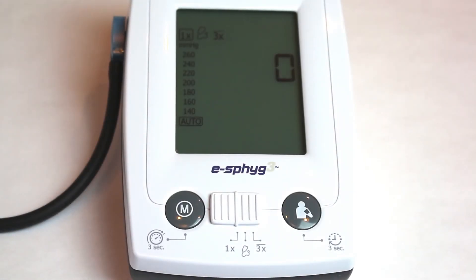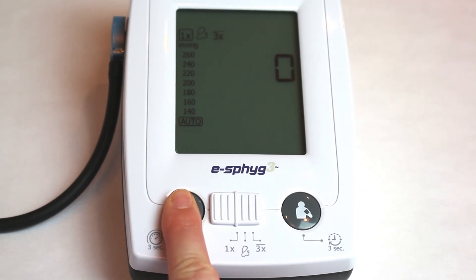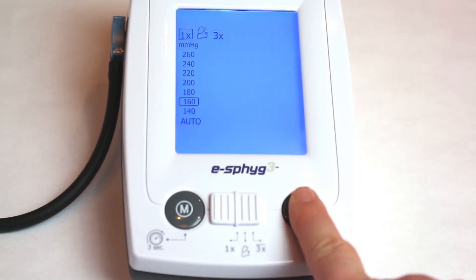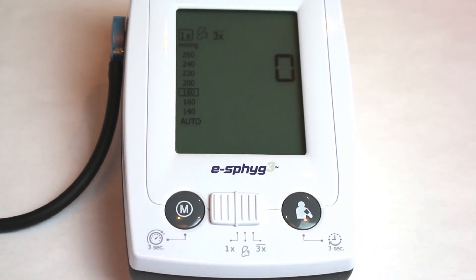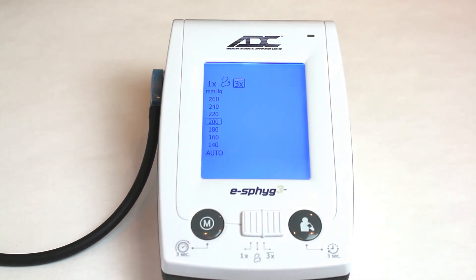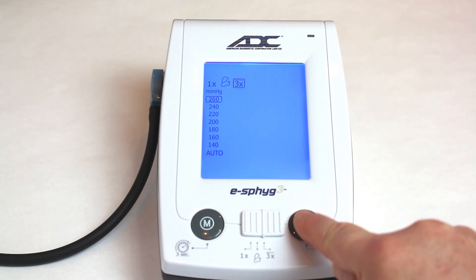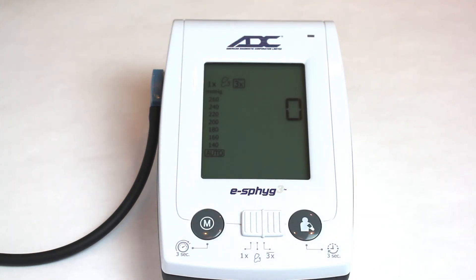By default, maximum inflation pressure is set to Auto. To change this setting, press and hold the Memory button for three seconds until the current value begins flashing. Press the Start-Stop button to change the value. When you reach 260, the selector will return to Auto. Press the Memory button to confirm the selected value.